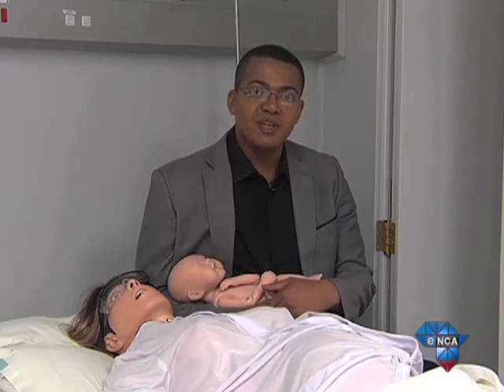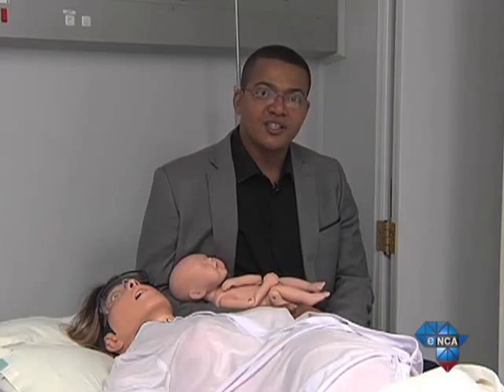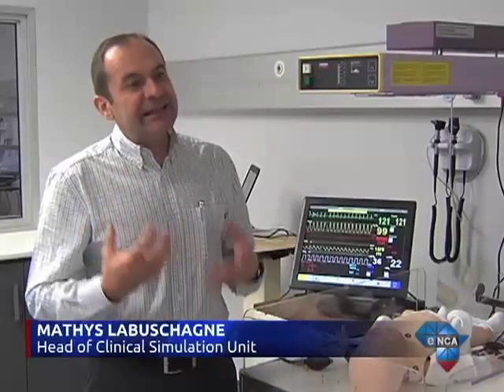Now, these dummies are helping to make smarter doctors at an earlier level. The purpose is to create an environment where students can learn in a safe, non-threatening environment to manage difficult situations, emergency situations.